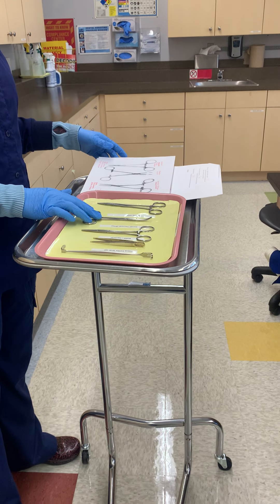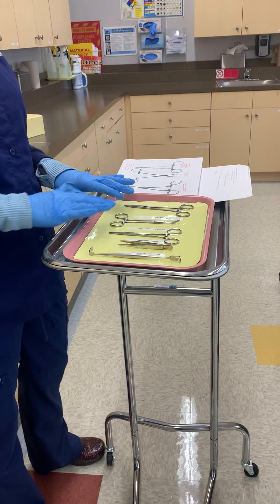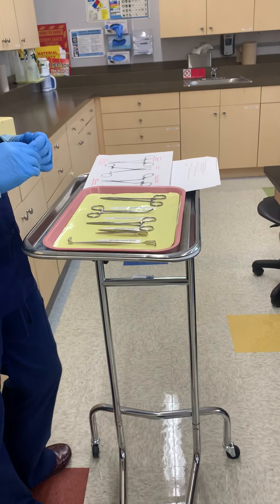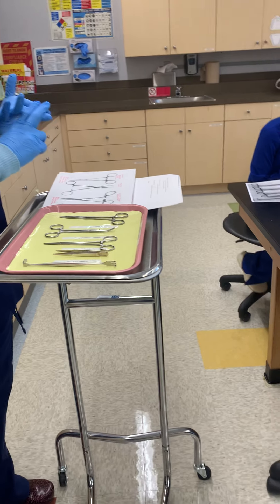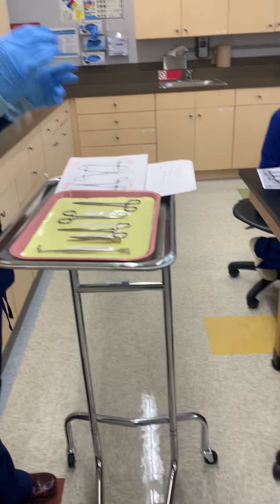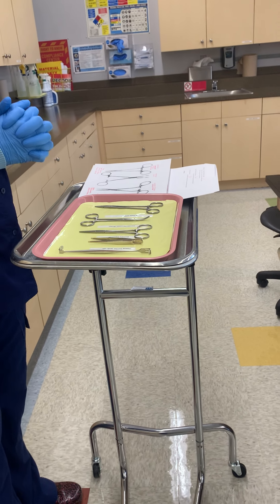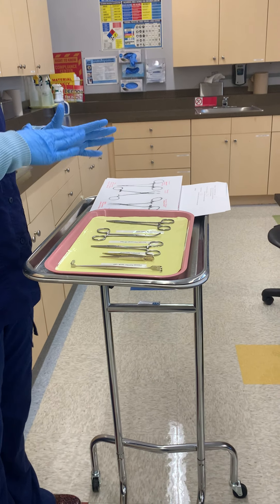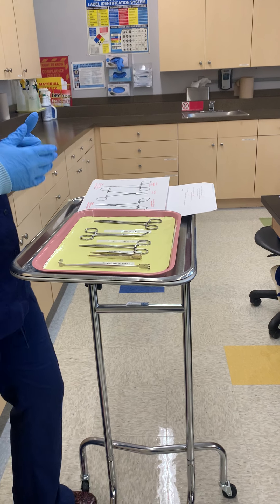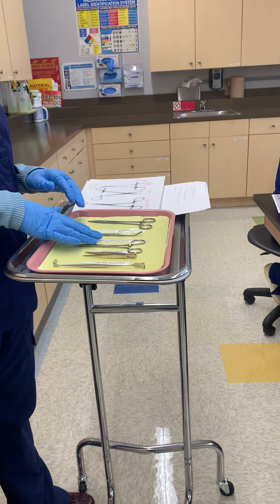I'm going to talk about the first three trays all together. This tray is made of hemostats and different things that we're going to pick things up with. It's easier if we go through and I give you a broad review of what some of these things are.